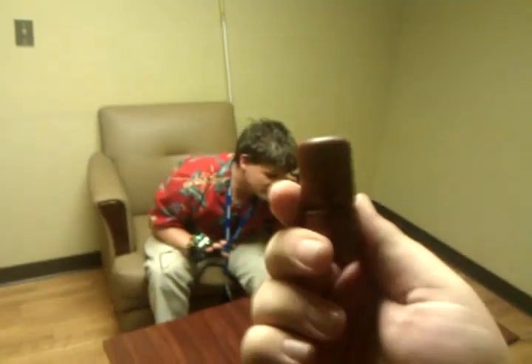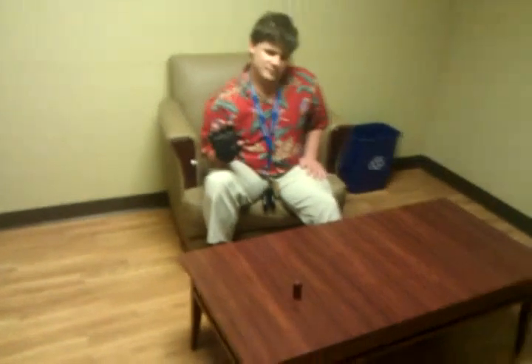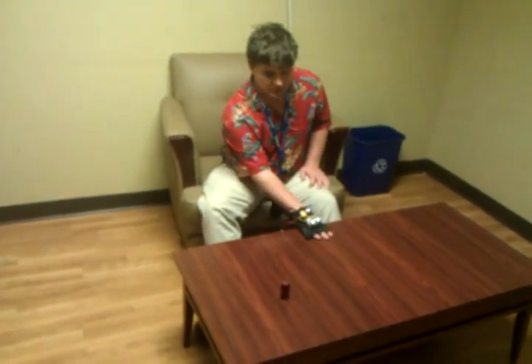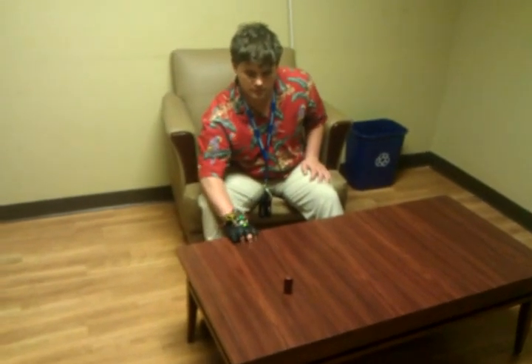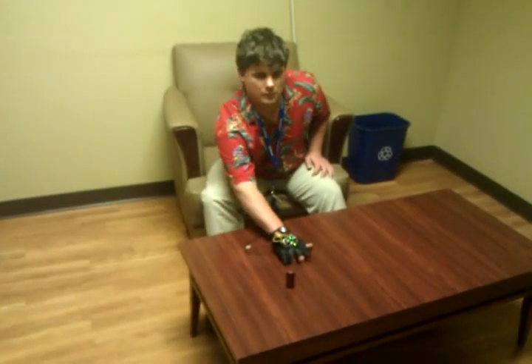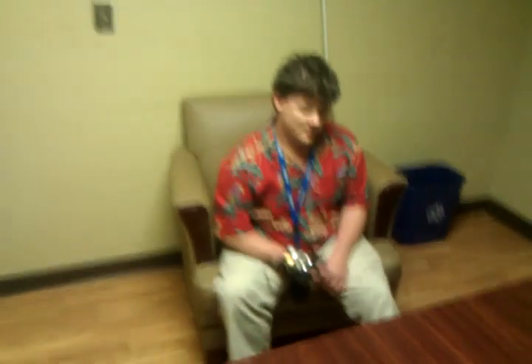I'm going to put down another object. This object is going to be a game piece that is about the size of a person's thumb. I'm going to put it down semi-randomly on the table. If you don't mind going ahead and trying to locate that. Sure. And there you go.